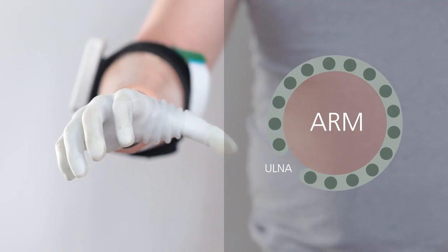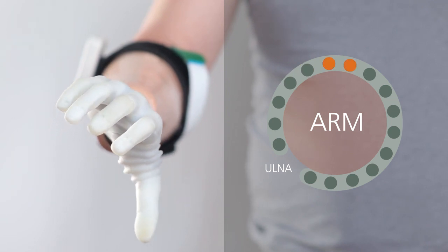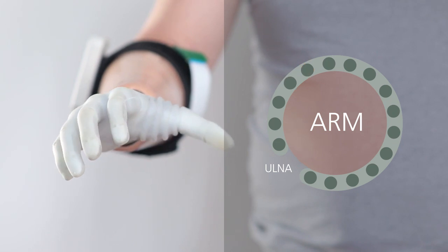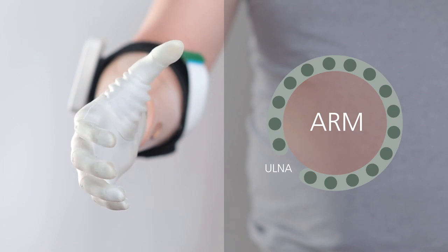When the hand is rotated, the user will sense the two active stimulation pads moving around the arm in the corresponding direction. The change in the active pads reflects the pace of the prosthesis rotation and provides the user with both absolute and relative hand rotation feedback.